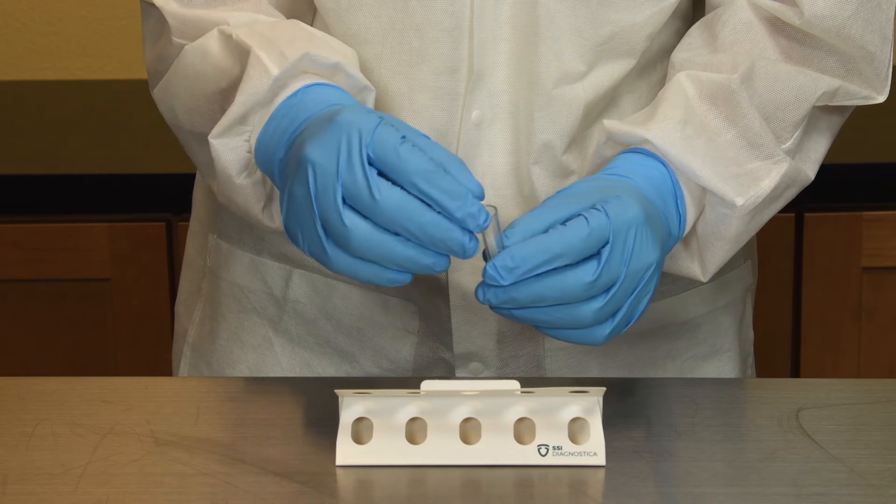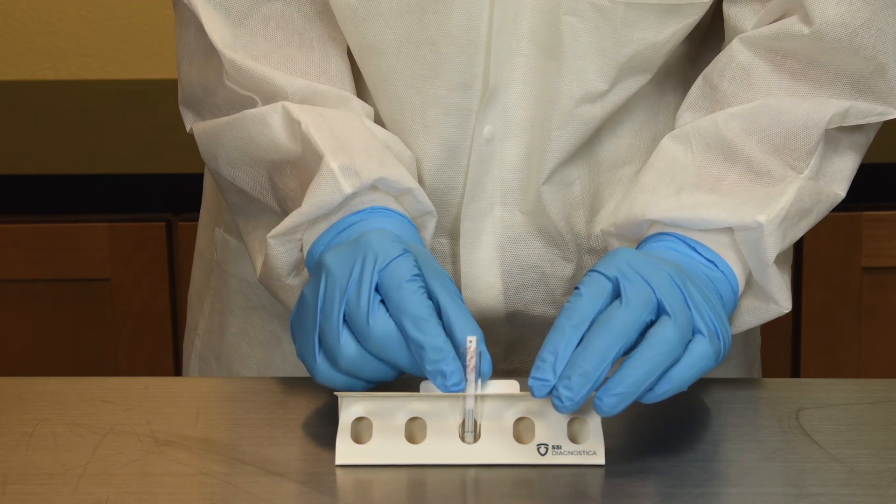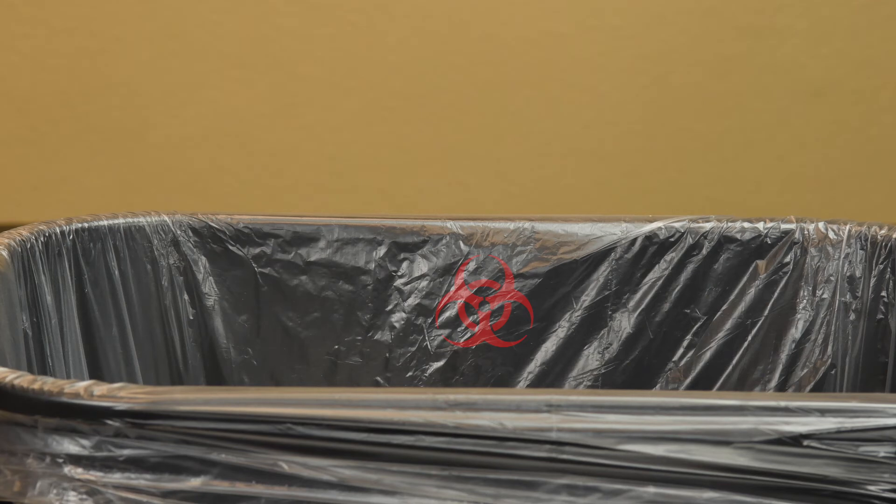After interpreting the results, the test strip can be lowered back into the tube, and the entire unit can be discarded as biohazardous waste.